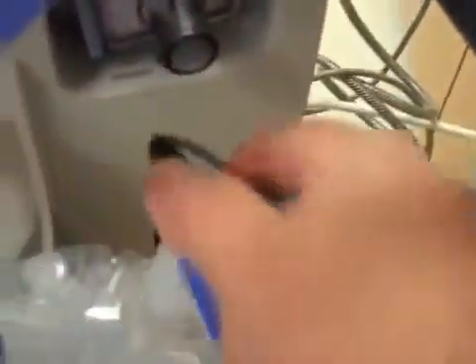Alright, down here now you can see it says connect humidifier if applicable. So I'm going to disconnect this, put it back on my humidifier, take my conduit and put that back on. Okay, Accept.